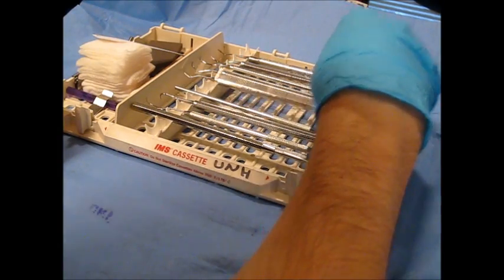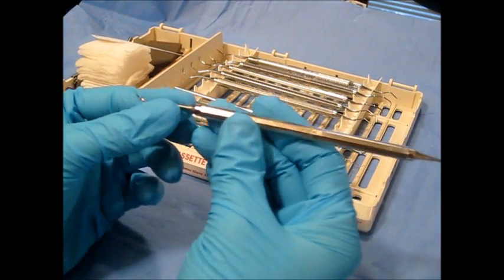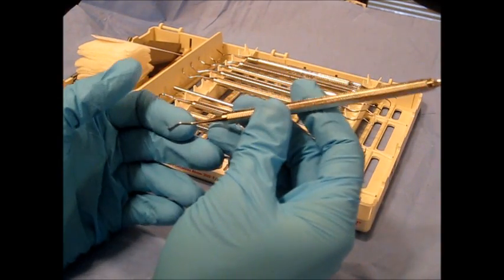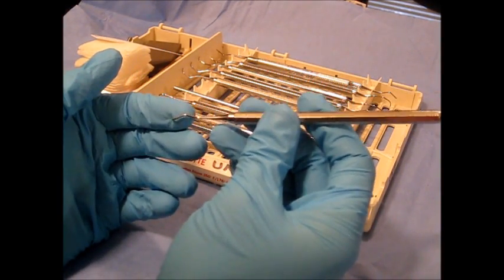Alright, so right here is the SD204. This is a debridement instrument and specifically it's a scaler.